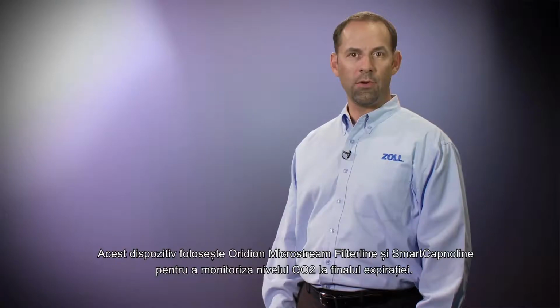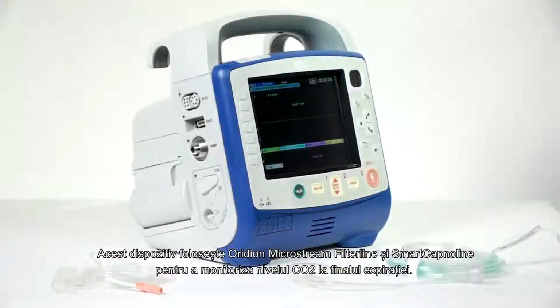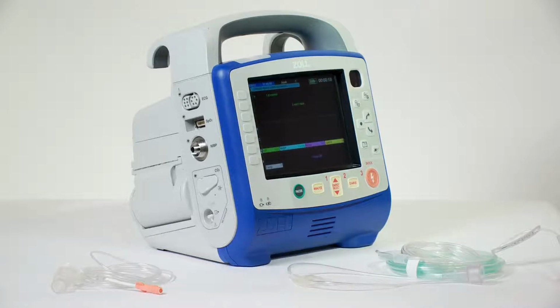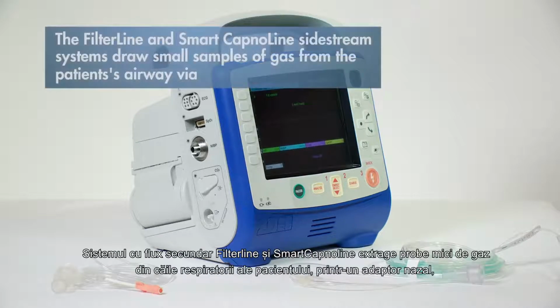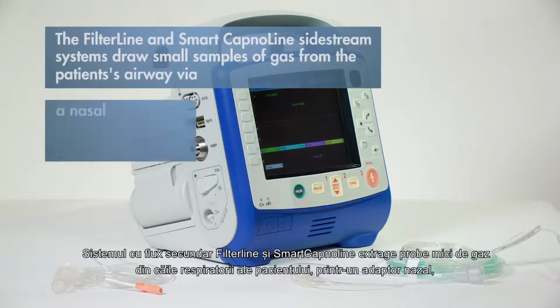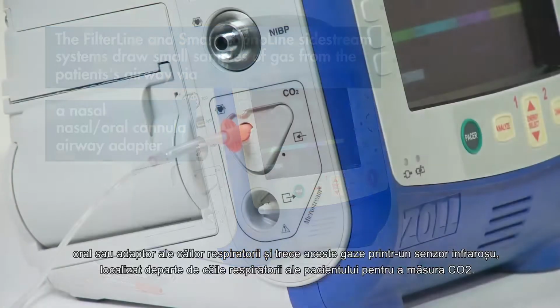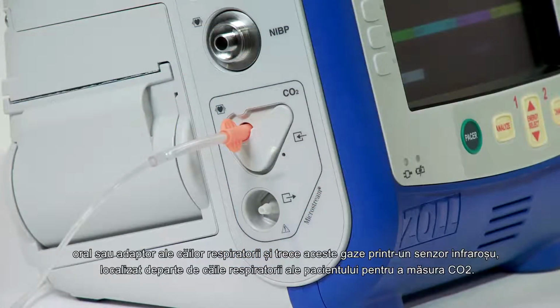This device uses the Oridion Microstream filter line and smart Capno line to monitor end-tidal CO2. The Oridion Microstream end-tidal CO2 provides multiple sampling cannulas, making it appropriate for use in intubated and non-intubated adult and pediatric patients. The filter line and smart Capno line sidestream system draws small samples of gas from the patient's airway via a nasal-oral cannula or airway adapter and passes these gases through a solid-state infrared sensor located away from the patient's airway that measures CO2.